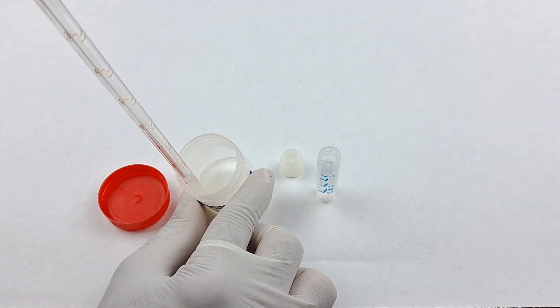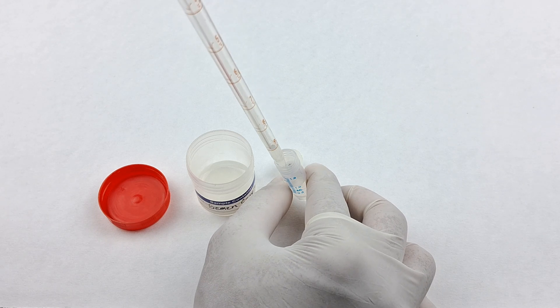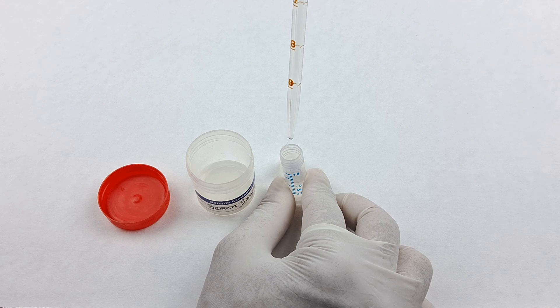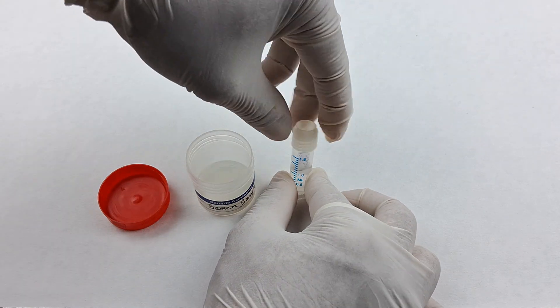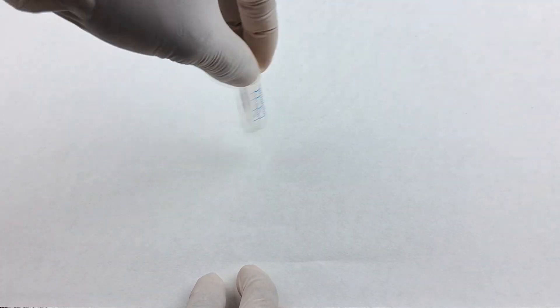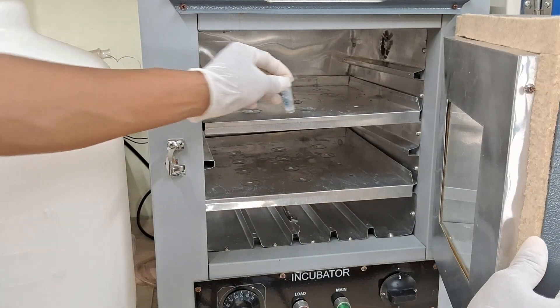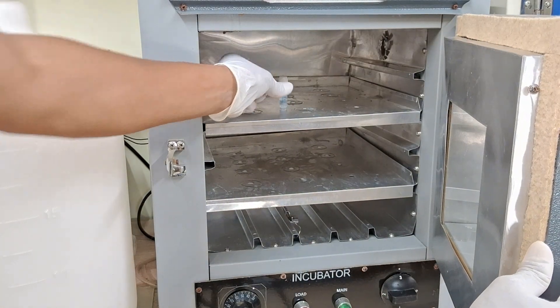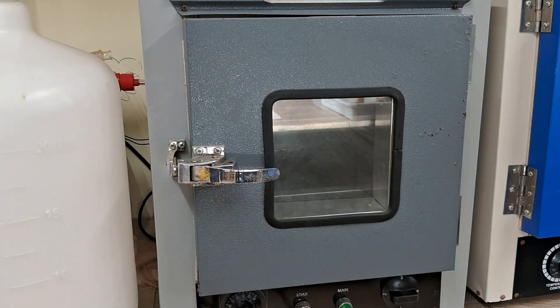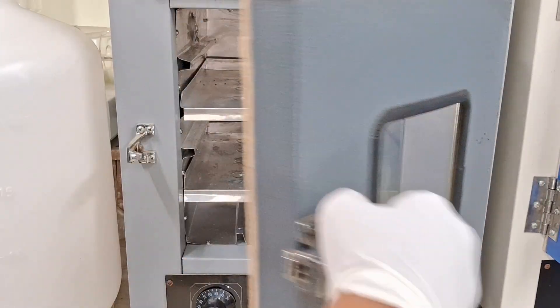Add 0.1 ml of thoroughly mixed, liquefied semen sample to the reagent in the tube and mix gently. Now incubate the semen–HOS solution mixture for at least 30 minutes, but not longer than 3 to 4 hours, at 37°C. At the end of 30 minutes or so, remove the tube from the incubator.